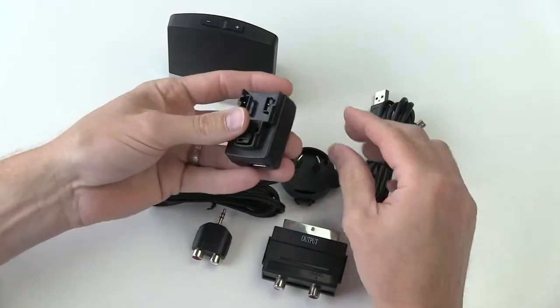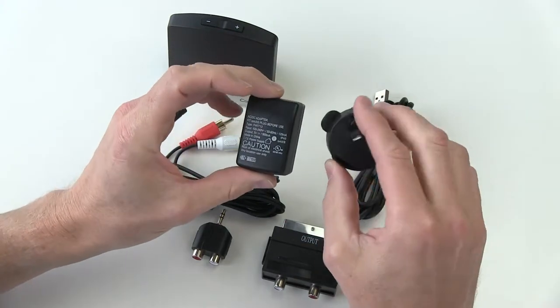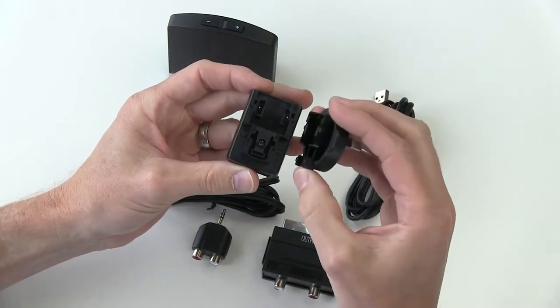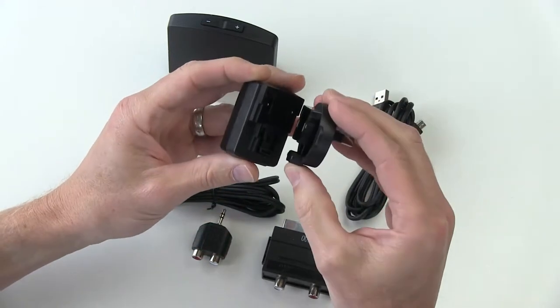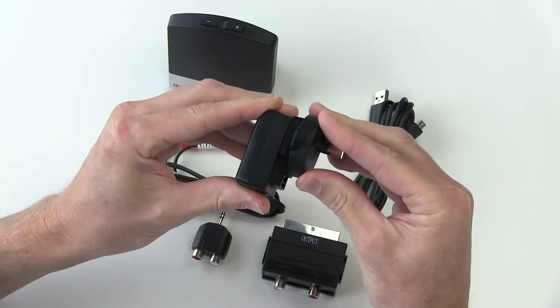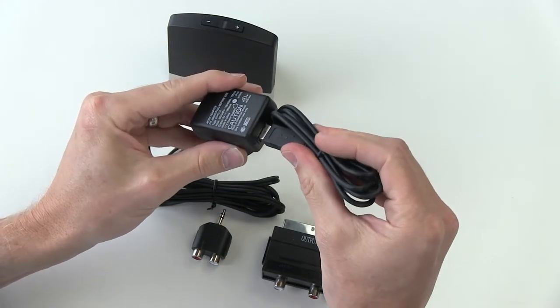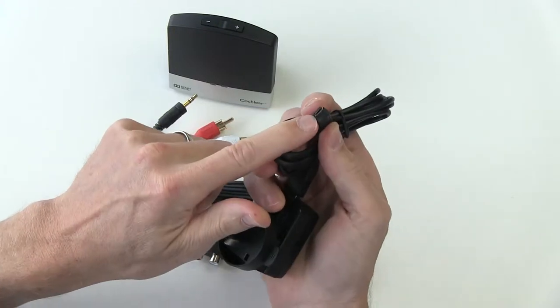The first thing we'll need for the TV streamer is power. We need to connect your power adapter with your power plug, and this part will change depending on which country you live in and which one you ordered. You simply take the plug and connect that to the adapter by lining up the metal prongs to the little slots there in the plug. That fits together, and then you push it in and slide it down and you'll hear a click as it slides down. Now your power is ready to go. This would plug into the wall and then you would plug the USB cable into the adapter and into the back of the TV streamer with the USB micro port.